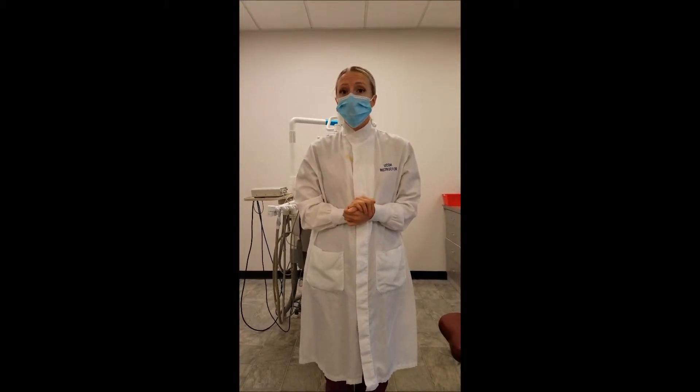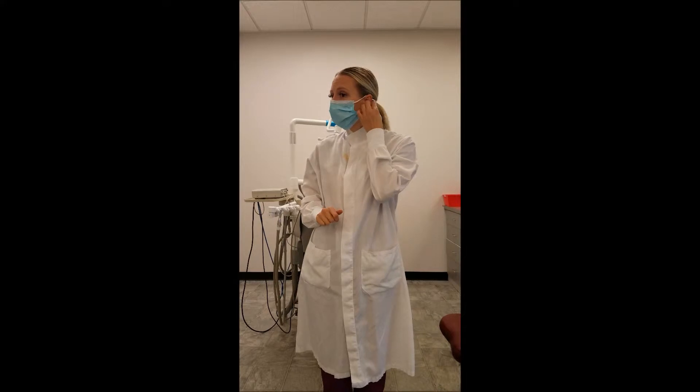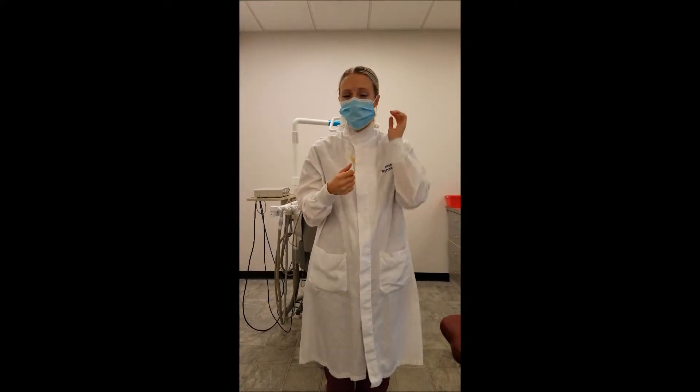When removing the face mask, you should always remove it by the side loops in the back and never by grabbing the front of the mask.